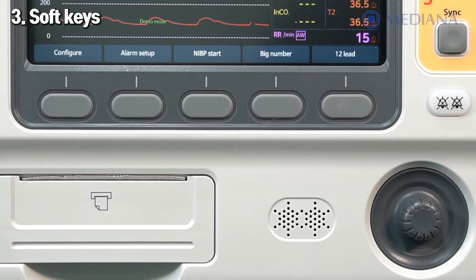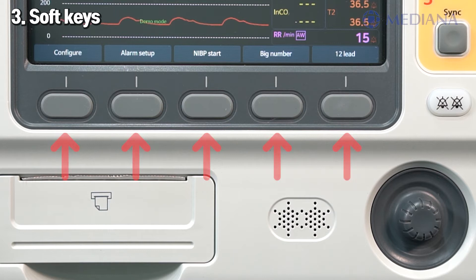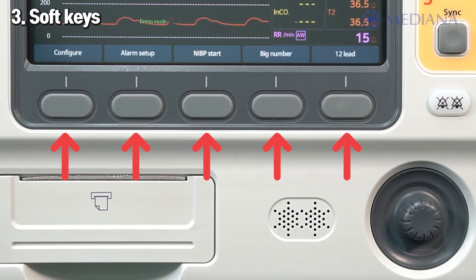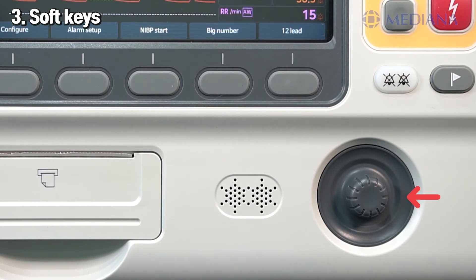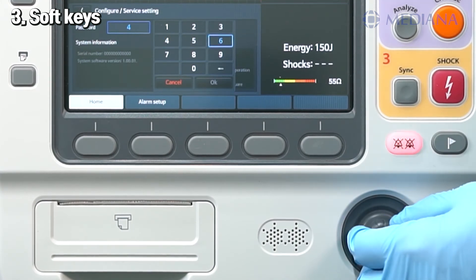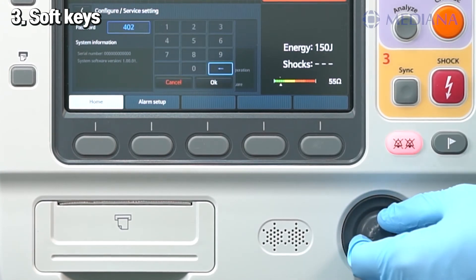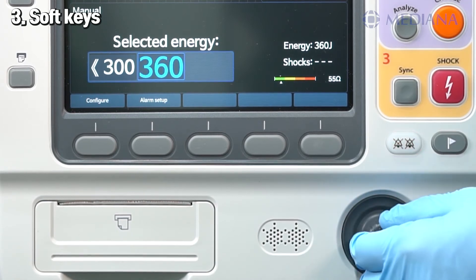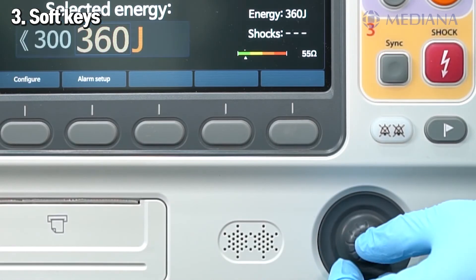At the bottom part of the front panel, there are soft keys, a printer, a speaker, and a multifunction knob. Five soft key buttons perform the functions listed on the soft key labels directly above, and the labels change according to the function being performed. The multifunction knob can be pressed to display a chosen category on the screen. You can scroll it clockwise or counterclockwise to select parameters. Press it again to select the required item. In a numeric selection window, turning the knob clockwise increases the value and counterclockwise decreases it. Press it again to confirm that value.